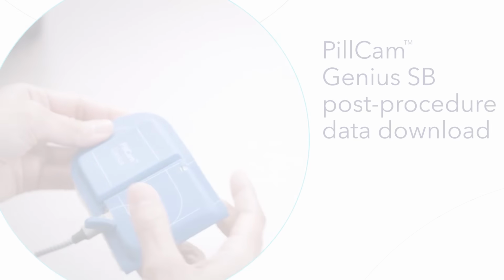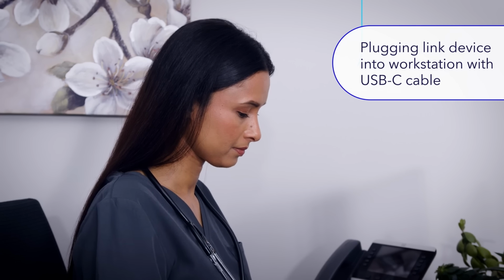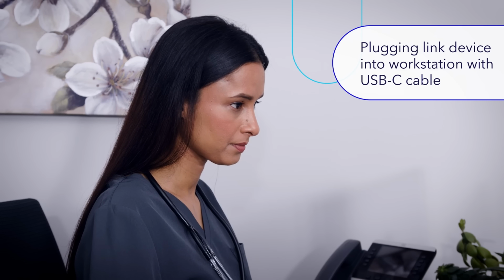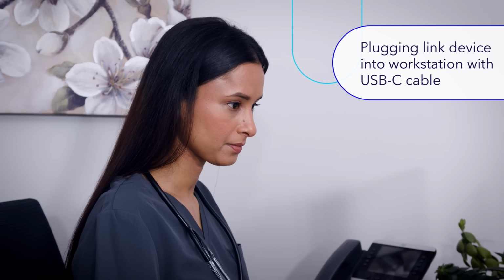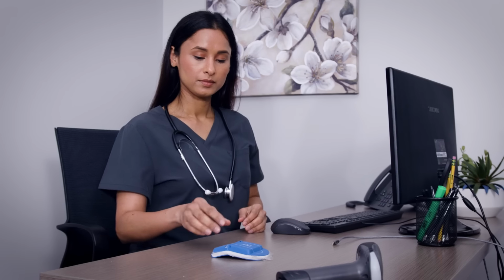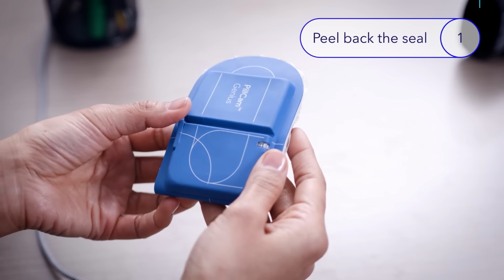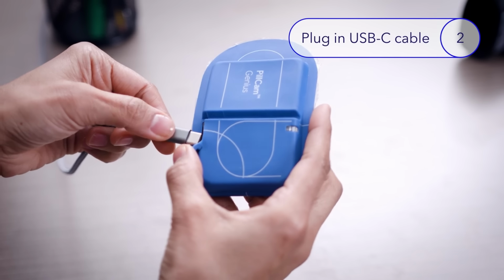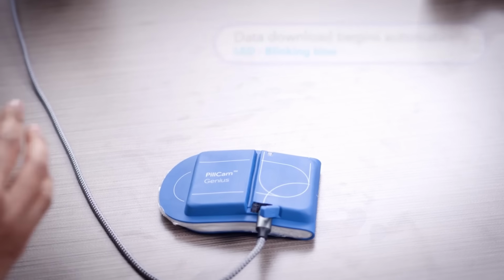When the PillCam Genius Link device is returned to the clinic, you will use a USB-C cable plugged into the workstation where the PillCam Genius Sync agent is installed to download the data for compilation and evaluation. To access the USB-C port, gently peel back the plastic seal on the bottom of the Link device. Plug in the USB-C cable to the port and data download will begin automatically.